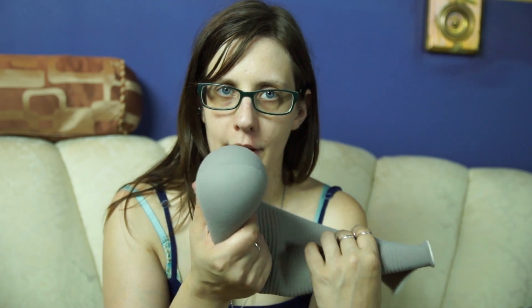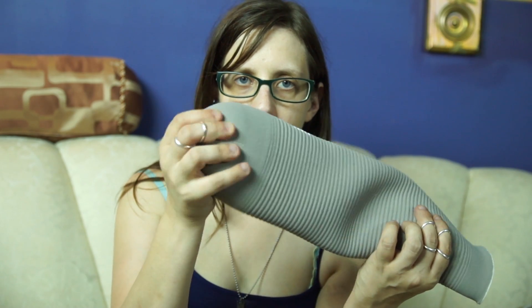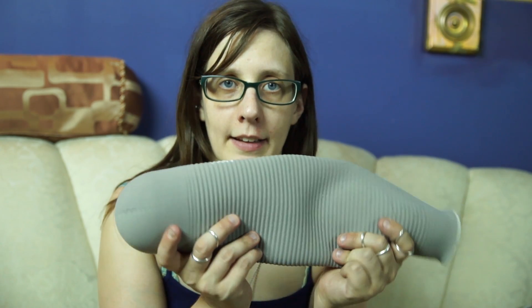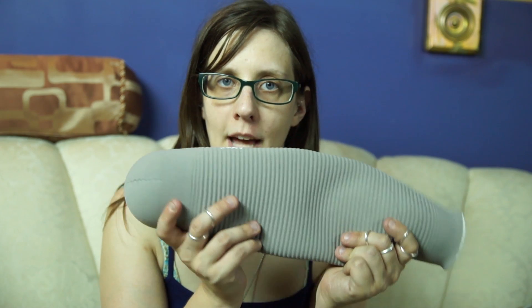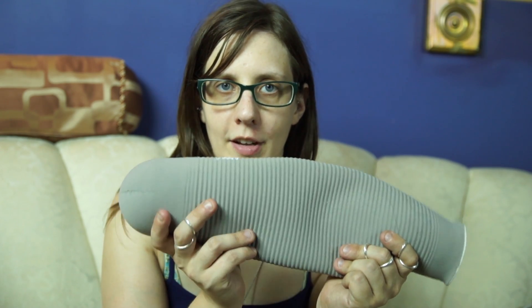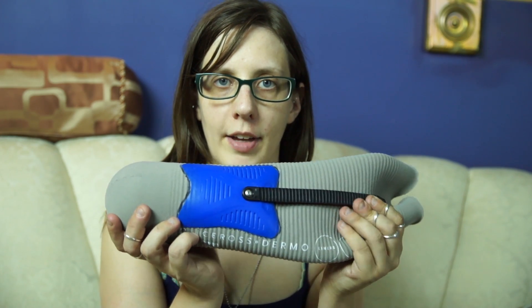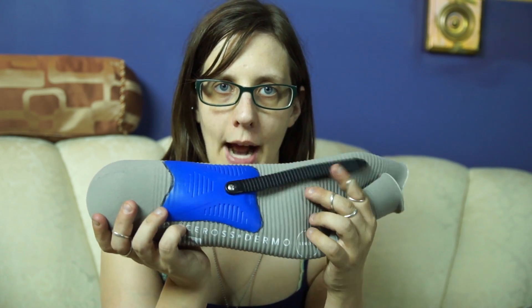This is a cushion liner. A cushion liner does not have an umbrella at the bottom. Instead, it just has cushiony material at the bottom of the liner. This is not a locking liner, and if you use this type of liner, then you need to use some other method of suspension, such as suction, or you can convert it into a locking liner by using a coyote proximal lock or a ratchet lock.